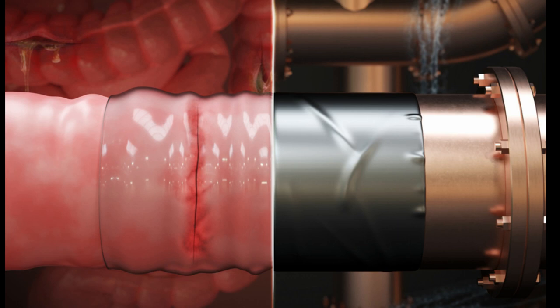When implanted under the skin of rats, the patch biodegraded after about 12 weeks, with no toxic effects.